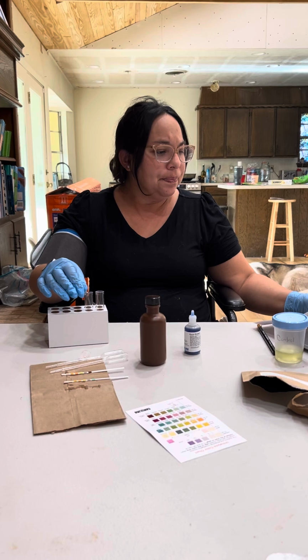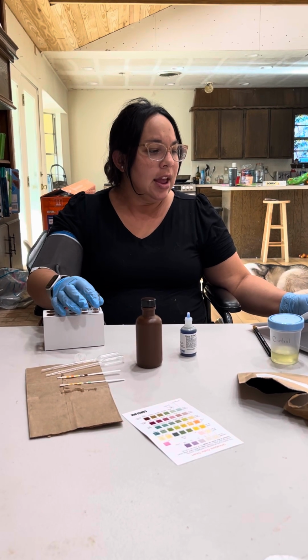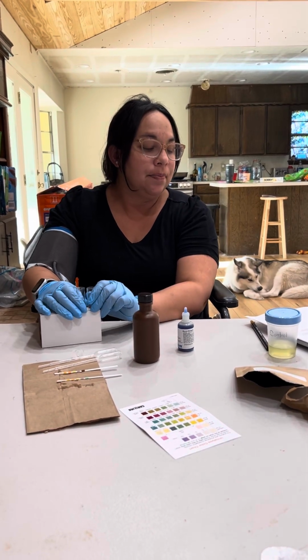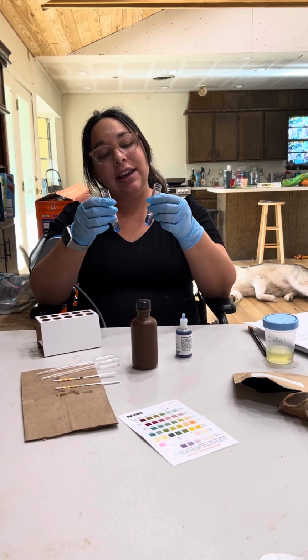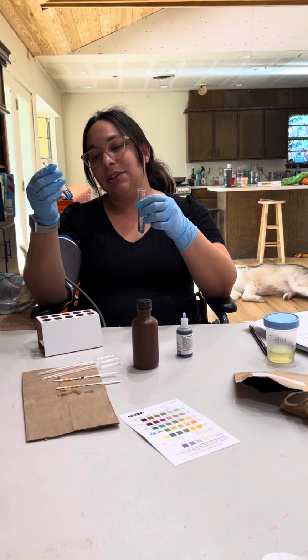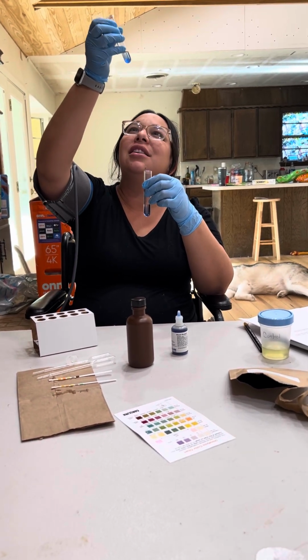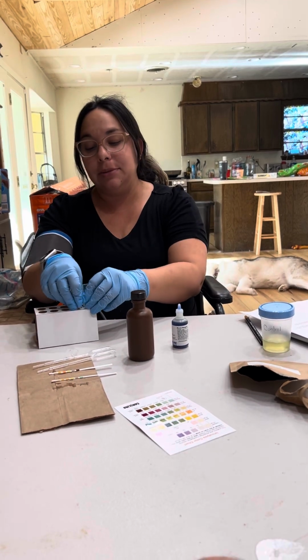If protein is present, a deep blue or violet will form. But I see deep blue in both, and it almost looks like there's protein in this one because it's all coagulated at the bottom. Maybe I need to mix them.